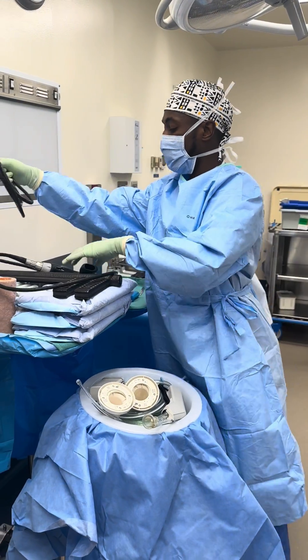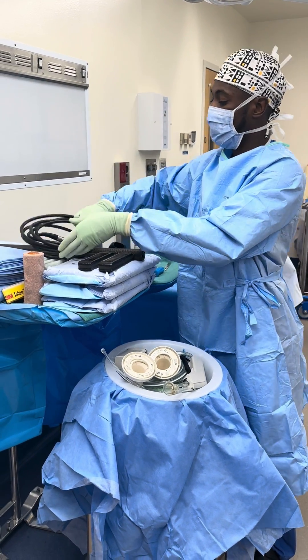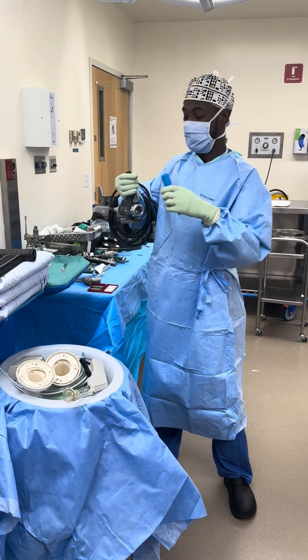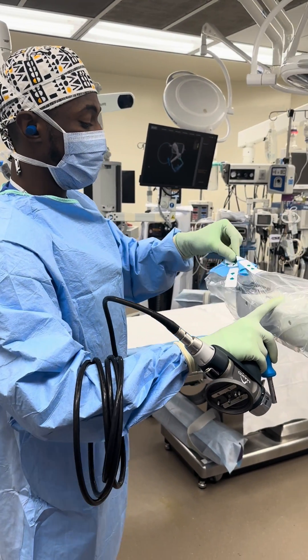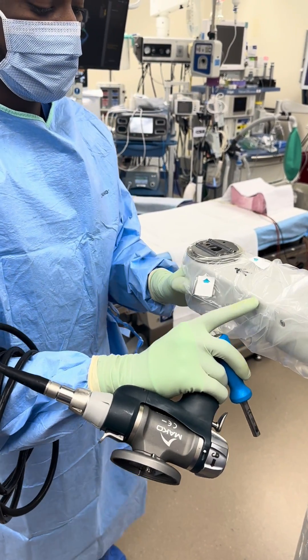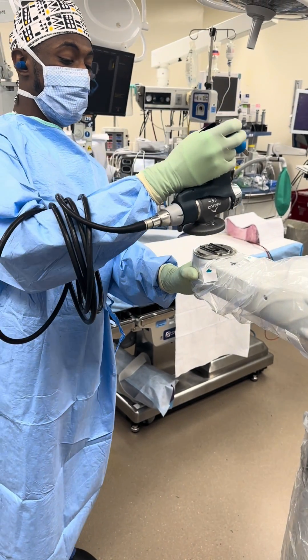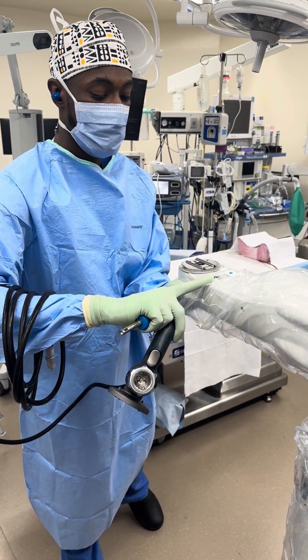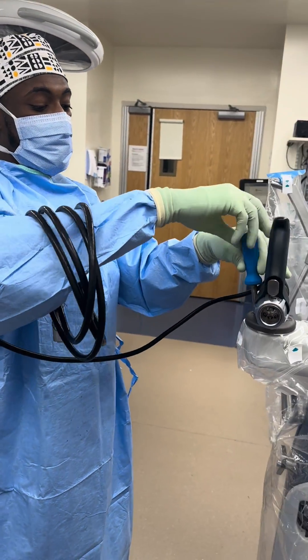I like to coil up the cord on this handle — otherwise it's a little too much to handle when it's not coiled up. Coil it up nice. Put that under my arm and bring it with me. When this is loose, hit the tab in the back and that'll lock it in. It's not sterile underneath there, so be pretty careful. Make sure you don't get any extra drape in there, because that can mess it up — it has to be facing the wall.